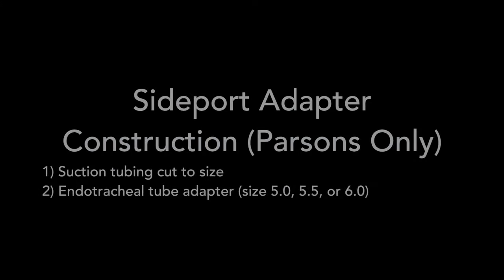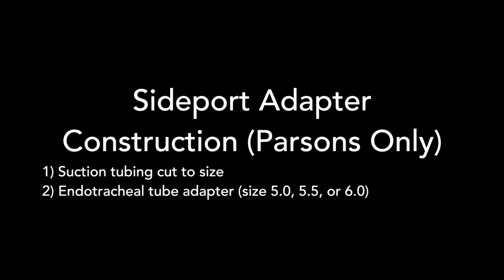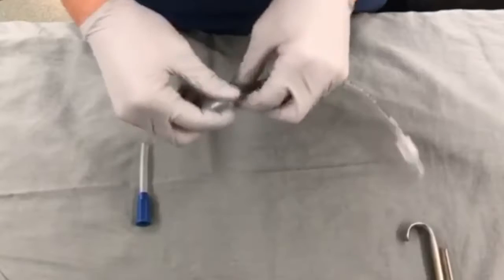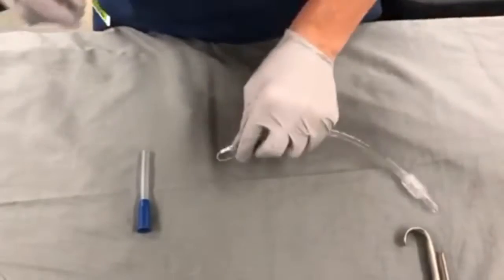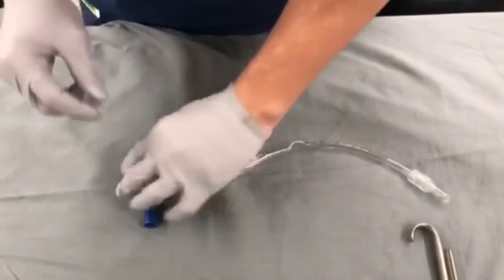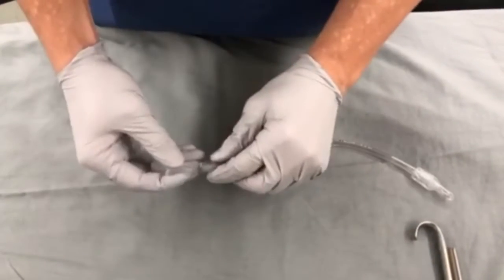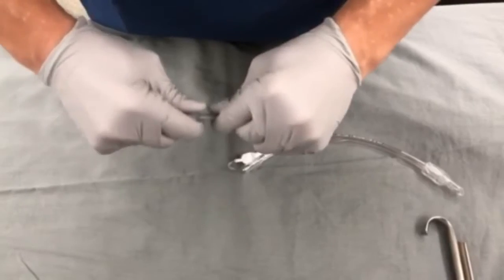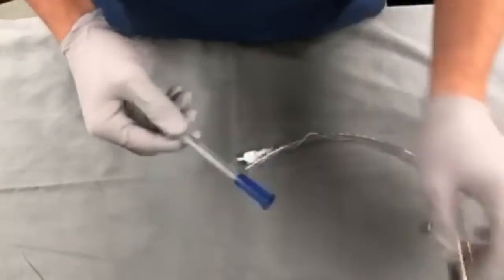A side port adapter can be constructed with the following equipment as shown in this short video. The purpose of the side port is to allow for passive oxygenation while suspended in laryngoscopy.